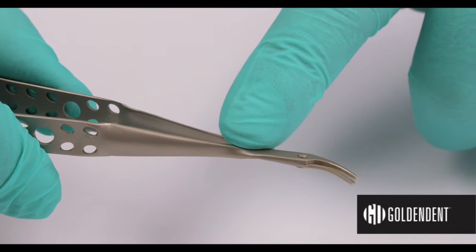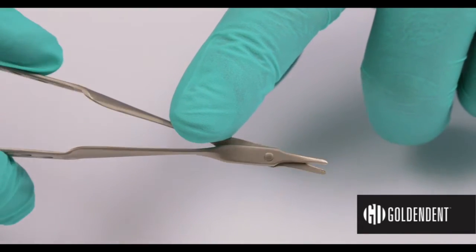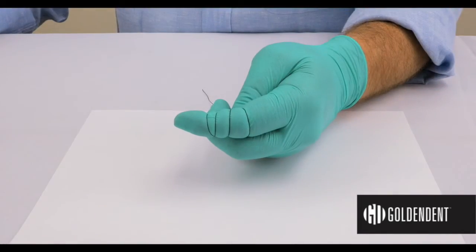Even though it is much lighter, it still remains sharper and stronger far longer than traditional stainless or carbon steel instruments.